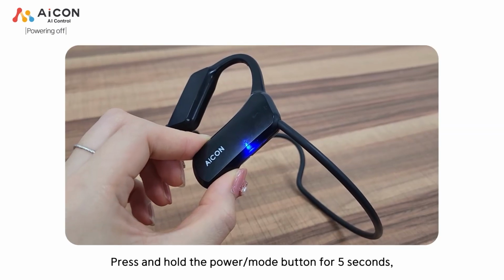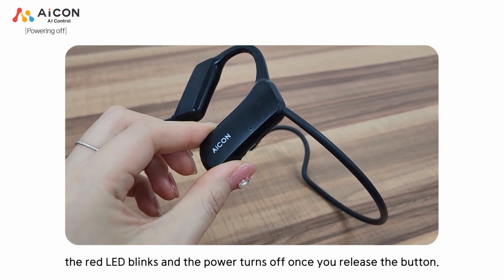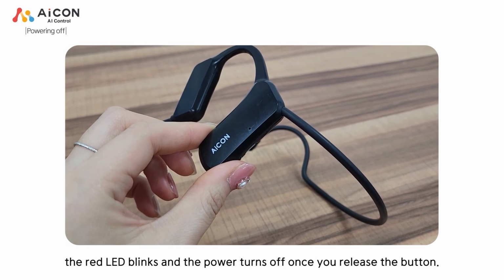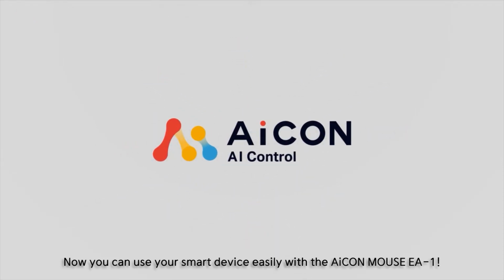Press and hold the Power Mode button for 5 seconds. The red LED blinks and the power turns off once you release the button. Now you can use your smart device easily with the AiCONMOUSE EA-1.